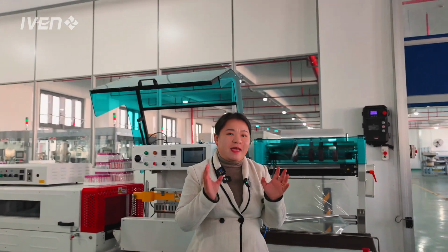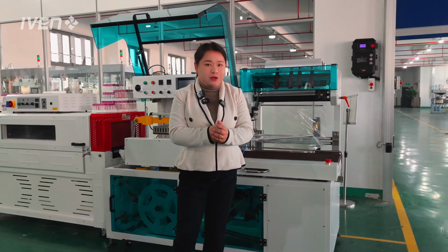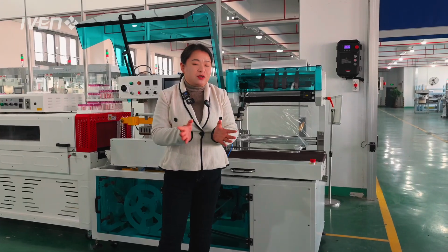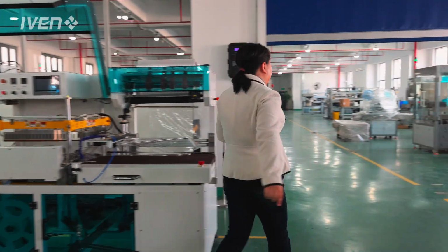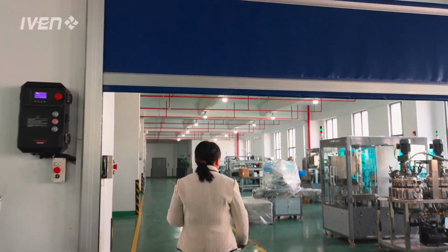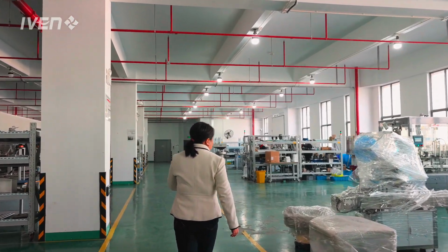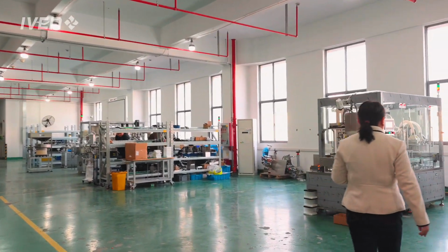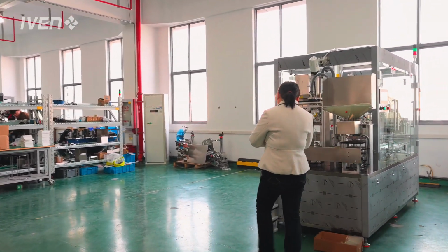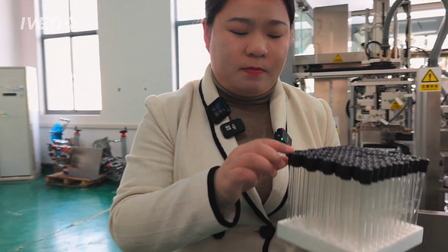So let's see what kind of blood sedimentation tube this is and how we can handle it. What's the new story here? Okay, today I will show you more details. Let's move to our new machine, which we customized for our customer from the Middle East, for sedimentation tube blood collection.